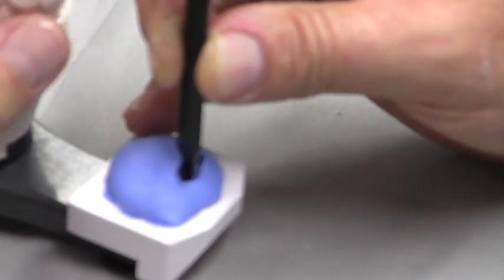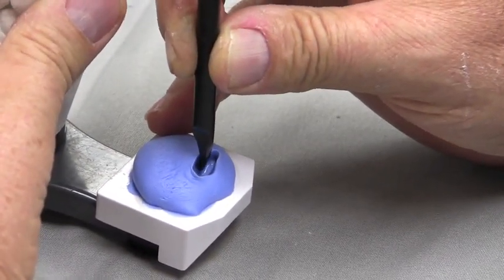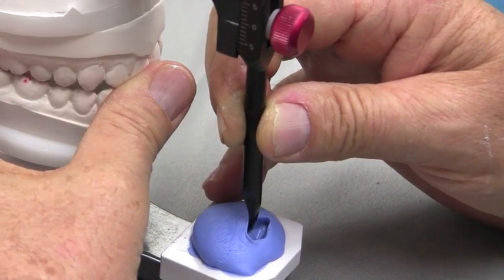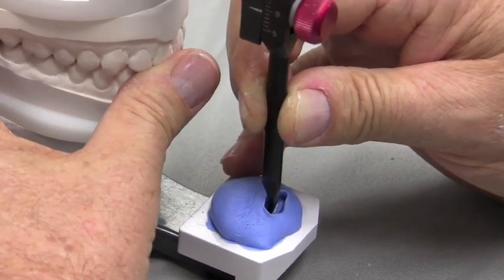Back to straight lateral, back to centric, open, close. Straight back in protrusive, back to the front. I've got my thumb here on the front so I can feel when I come in to end to end, so I stop this in an end-to-end position. Come back to centric. Back to lateral. Little tiny circles in between.